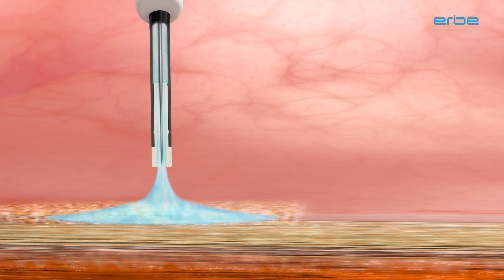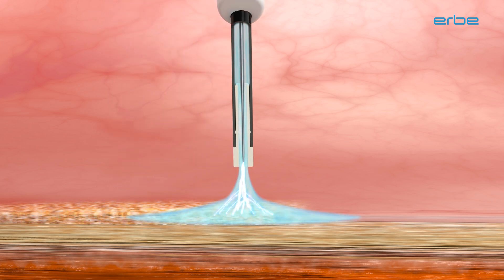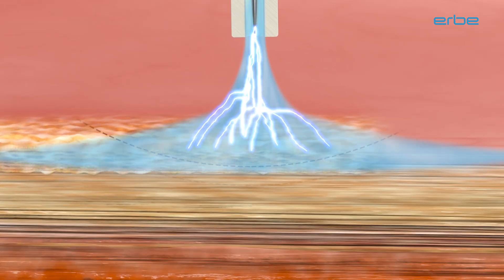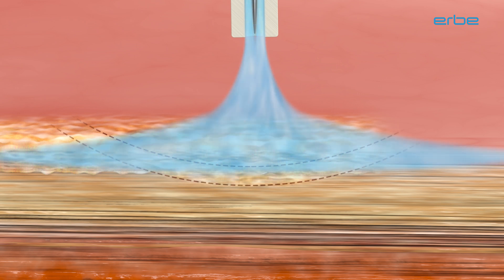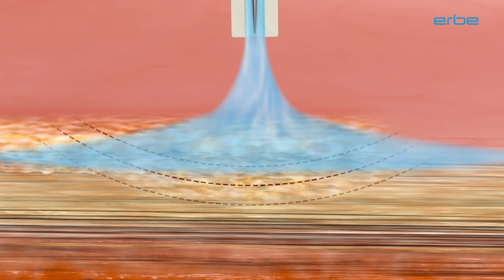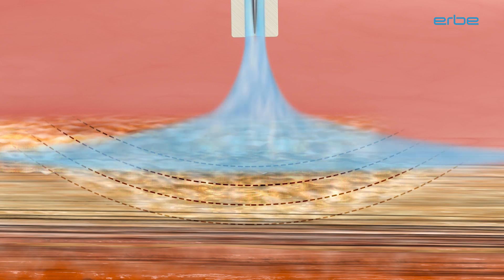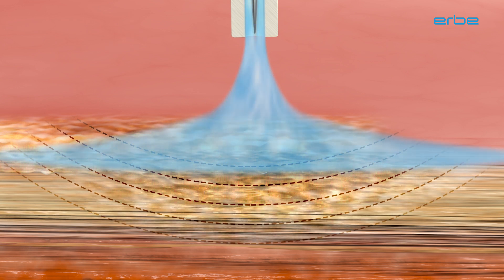The duration of activation, the distance to the tissue, and the modes set on the generator have an impact on the tissue effect. The conductivity of the tissue diminishes due to drying out on account of the thermal effect, and an undesirable depth of penetration is thus avoided.